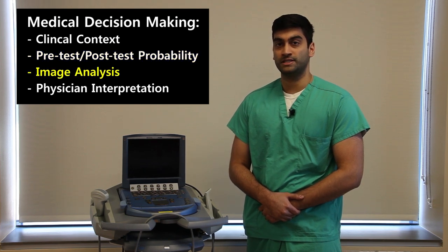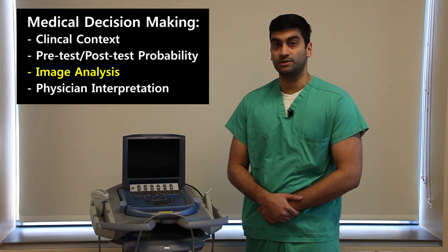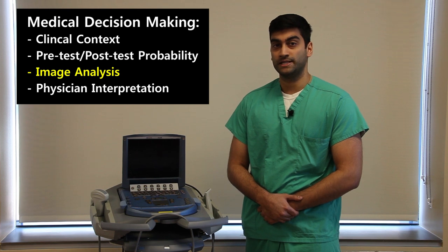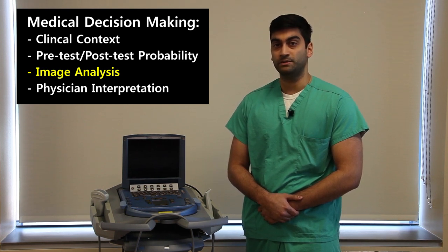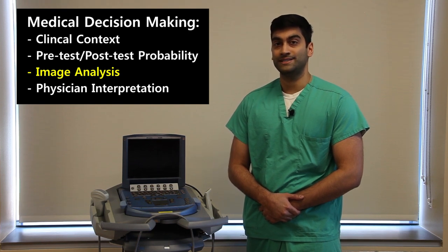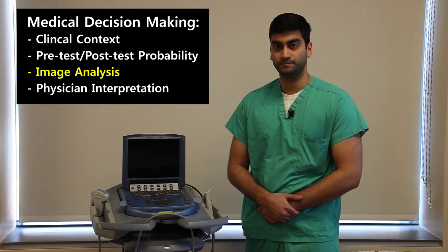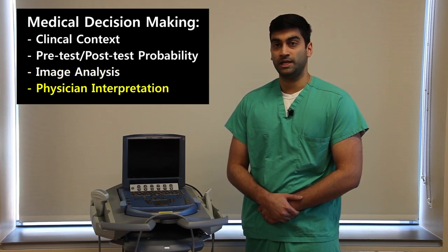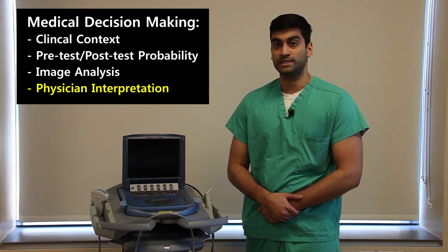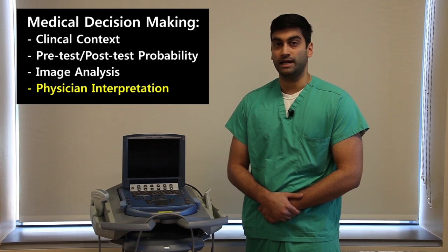Additionally, the physician must first establish whether the images and video obtained are technically sound and adequately answer the clinical question. For example, a FAST scan looking for free fluid in the abdomen can be negative for free fluid, positive for free fluid, or indeterminate if the necessary views were unable to be obtained. The last step is physician interpretation, which uses physician judgment combined with clinical context and pre-test and post-test probability to guide medical decision making.